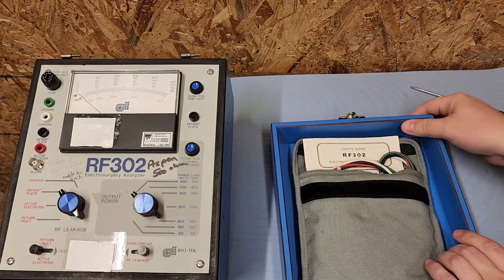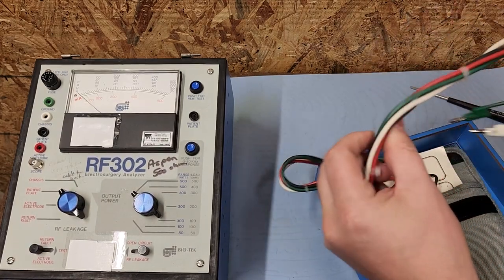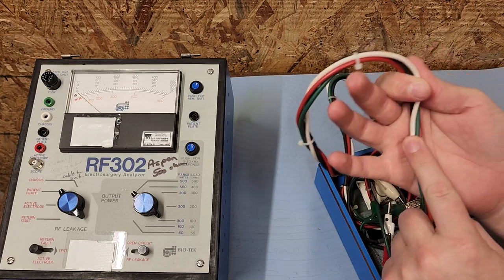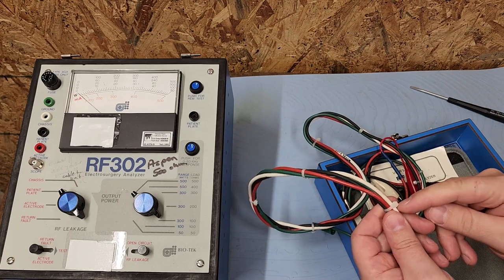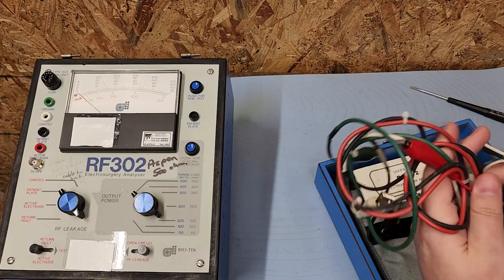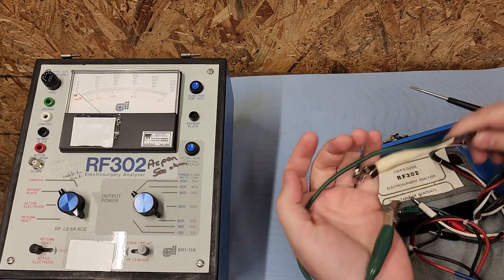All right, so there is a Biotech Instrument label up inside. I have a set of leads — check these out, banana plugs at one end. Not much has changed! I almost cut myself on these guys. The days of leaving sharp tags on zip ties — that's been going on for decades. Annoying. Anyway, let's see what else we got.